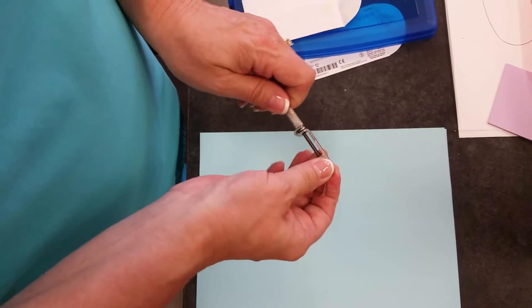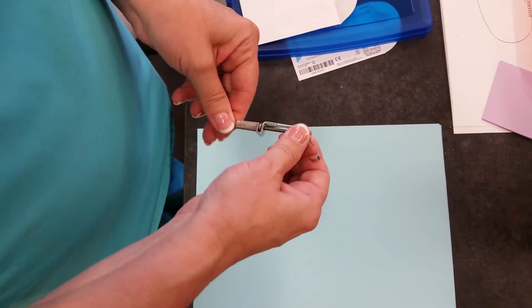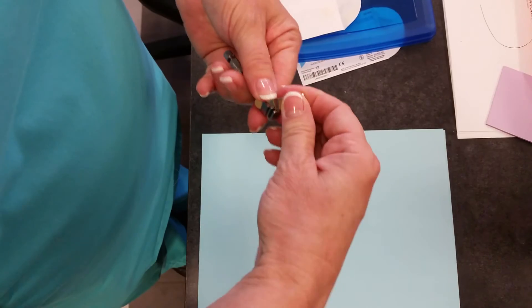So if you're doing tooth 30, or actually this would also be for like number 3, for tooth 30 it would go to the left.